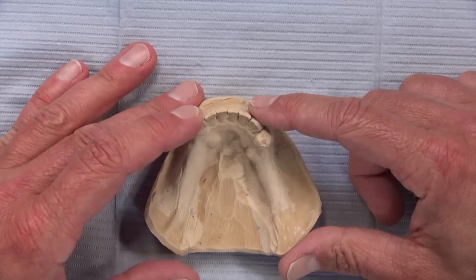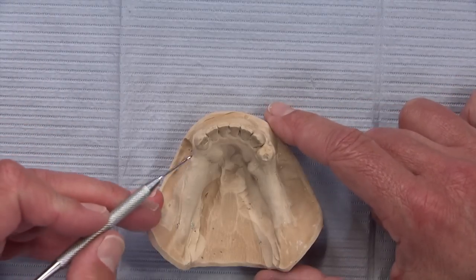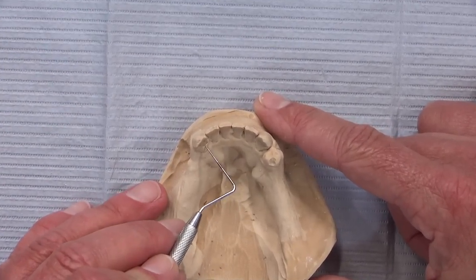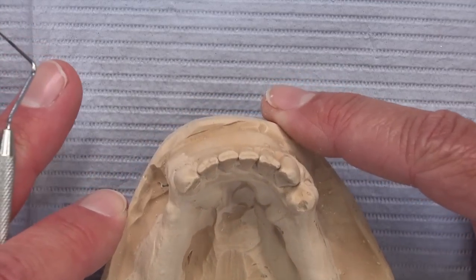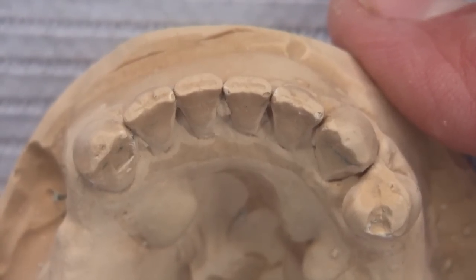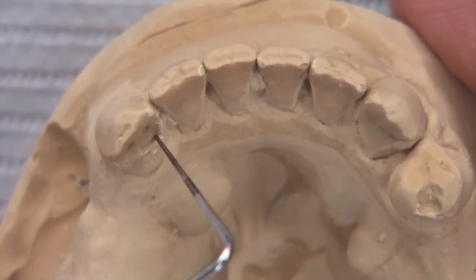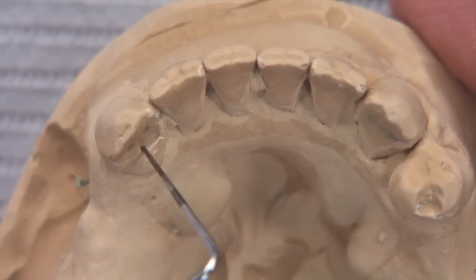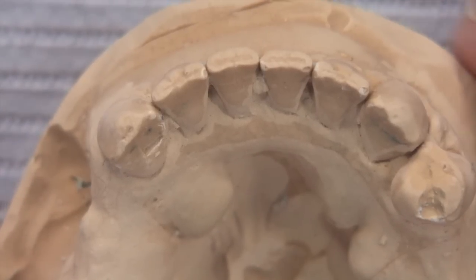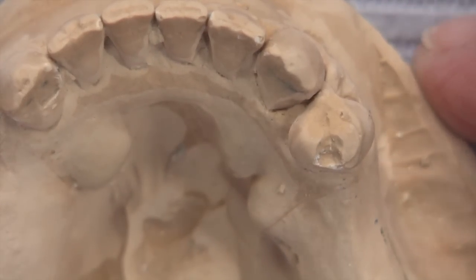The patient has teeth 22 through 28, and the doctor prepped a nice defined cingulum rest prep on number 22. Look at that — there's no undercut; it looks minimal, not super deep, but it's enough. That little ledge is all we need to hang on. Nothing wrong with going a little deeper, but you can see the ledge as we zoom in. It's a decent ledge and it shouldn't cause the tooth to break. That's enough for us to engage it with our partial and keep this from driving itself down into the tissue. We also see a distal rest prep on the other side on tooth number 28.